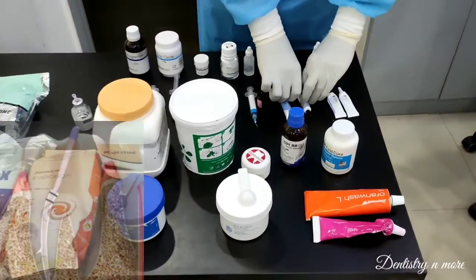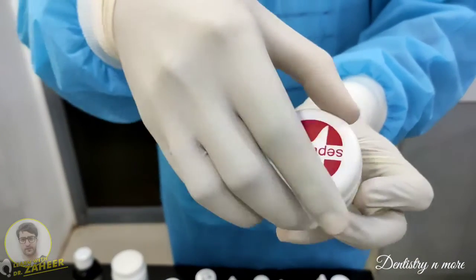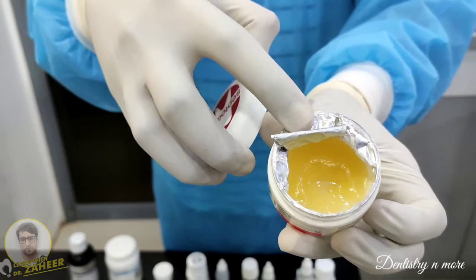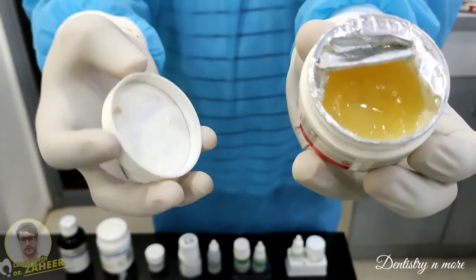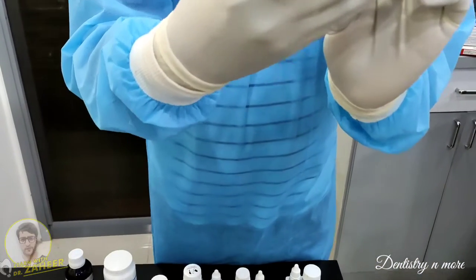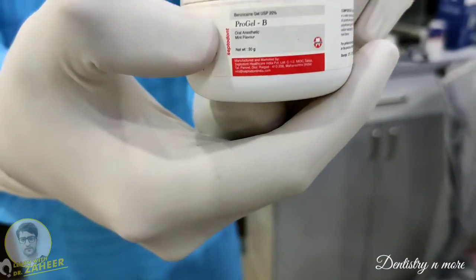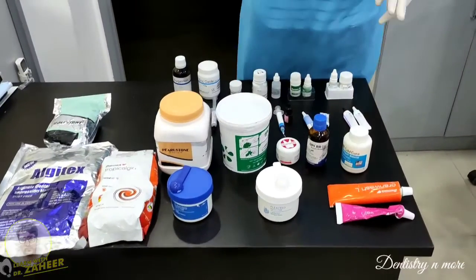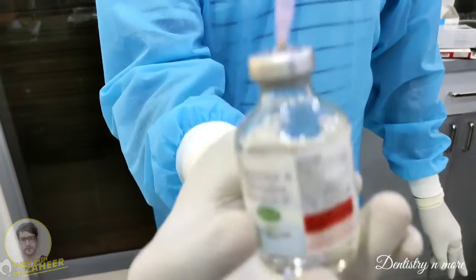This is a topical anesthesia in the form of a gel — a benzocaine gel that can be applied over mucosal surfaces for minor surgical procedures or to remove milk teeth in children. For adult teeth, better anesthesia can be obtained by injection.